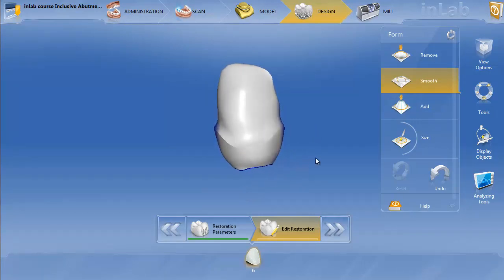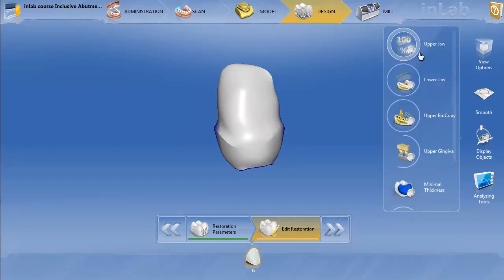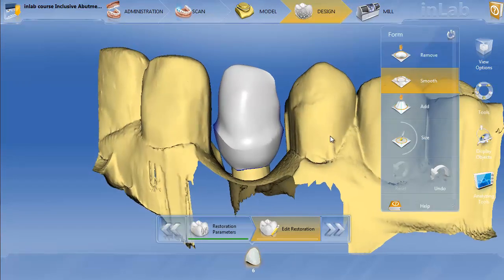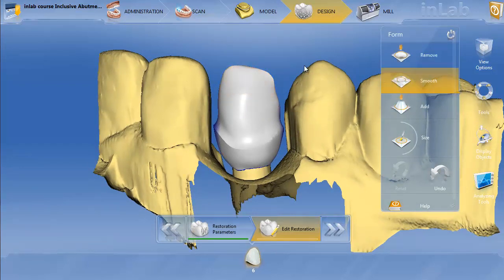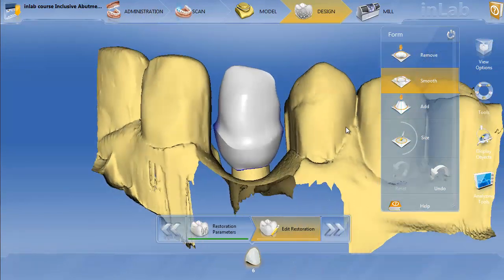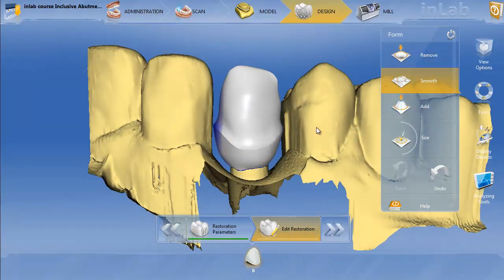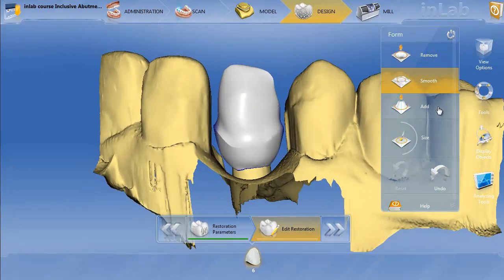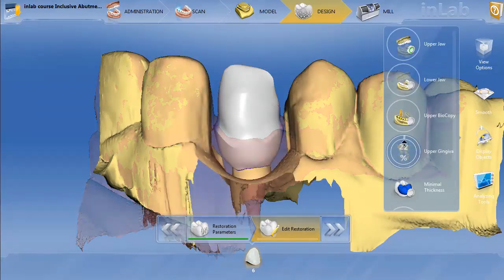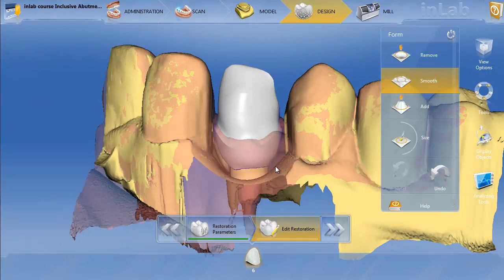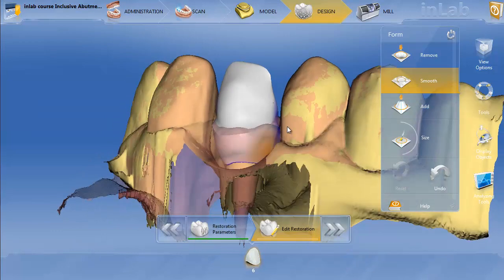You can make a telescope, but this has found to be a bit easier for me to do it this way, because I don't have to telescope it and then try to make a restoration over the top. I'm designing the restoration first and then just reducing it into a custom abutment. I've got the same emergence profile that I originally created — you can actually check that with your gingiva — the same emergence profile from that full contour crown.